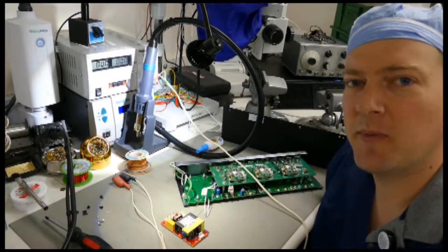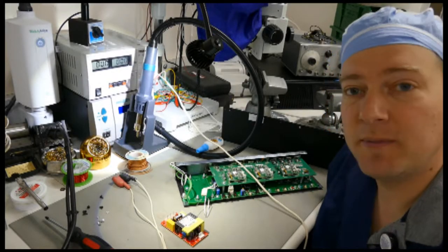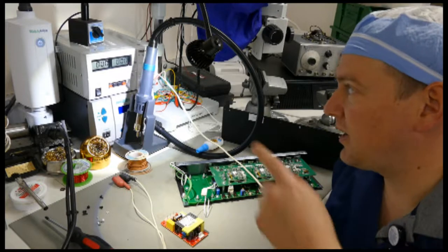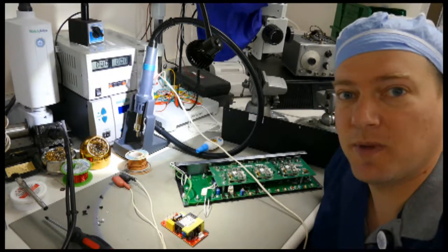Hi guys, welcome back to A Better Biomed. Today I'm going to do an impromptu video on how to use a regulated DC power supply for troubleshooting.